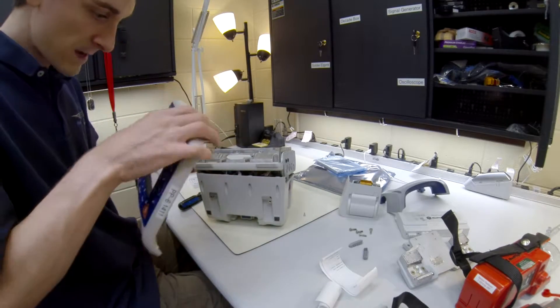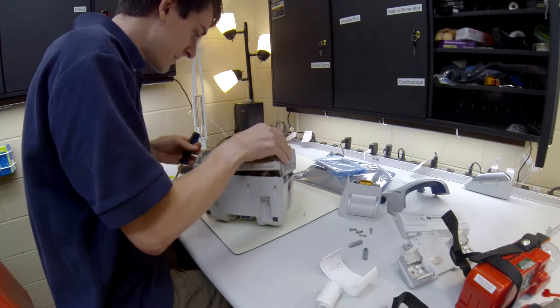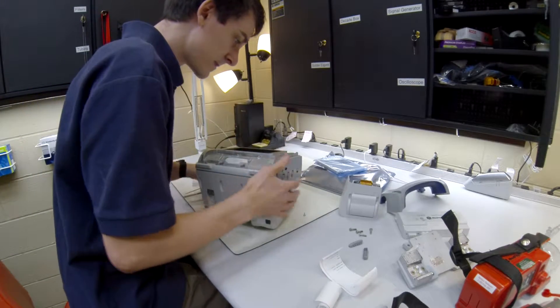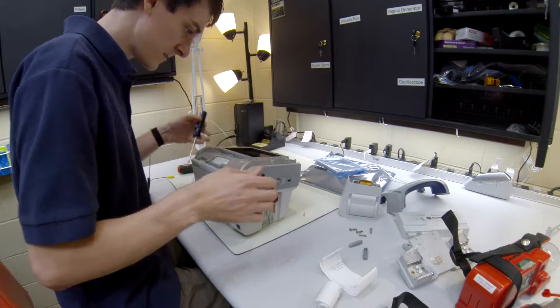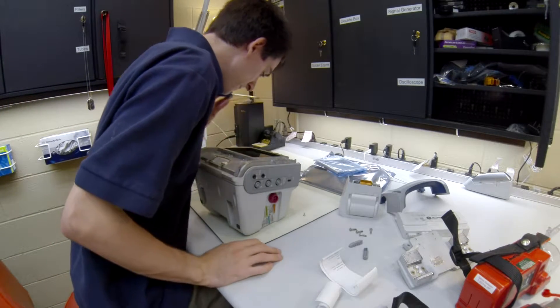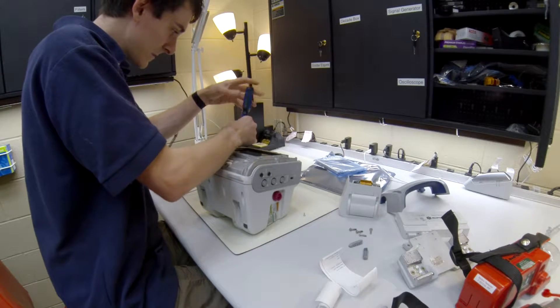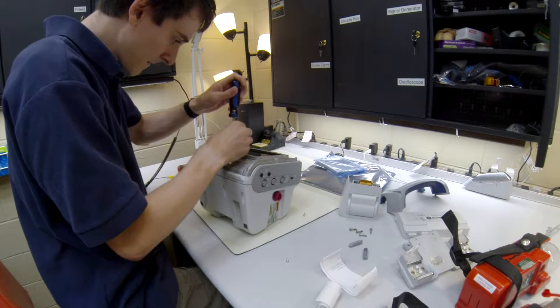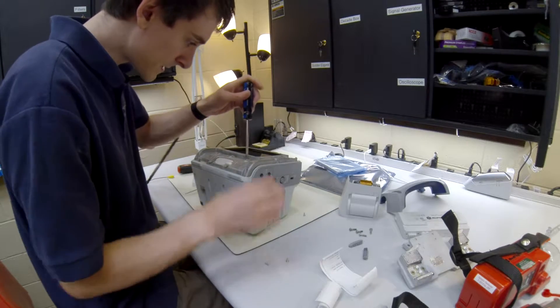This is trash — can't have a broken screen. Alright, so now we're going to pull this LCD screen out. I'll be honest, I don't quite remember how to do that. There are a couple screws around here. There are a total of six screws. I'm pretty sure I don't have to pull out all of them, but for the time being I'm still going to. They all take a standard Phillips head.